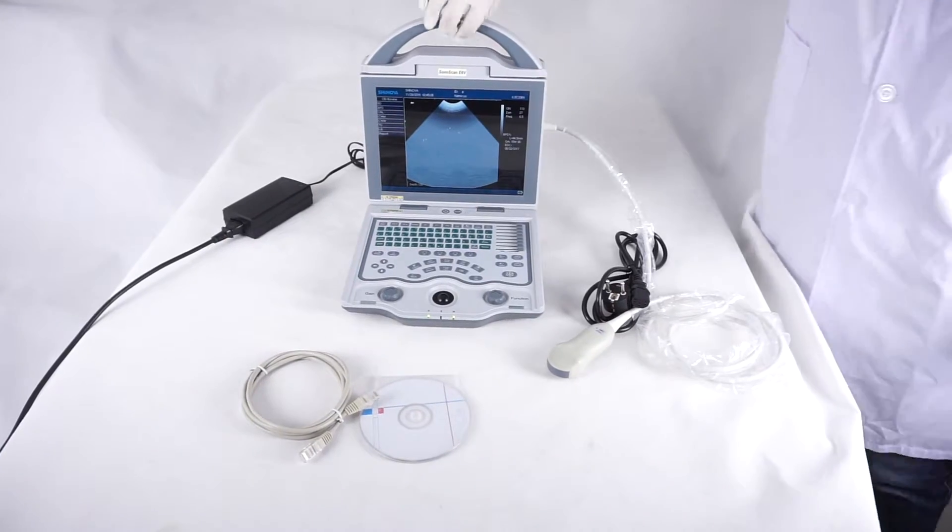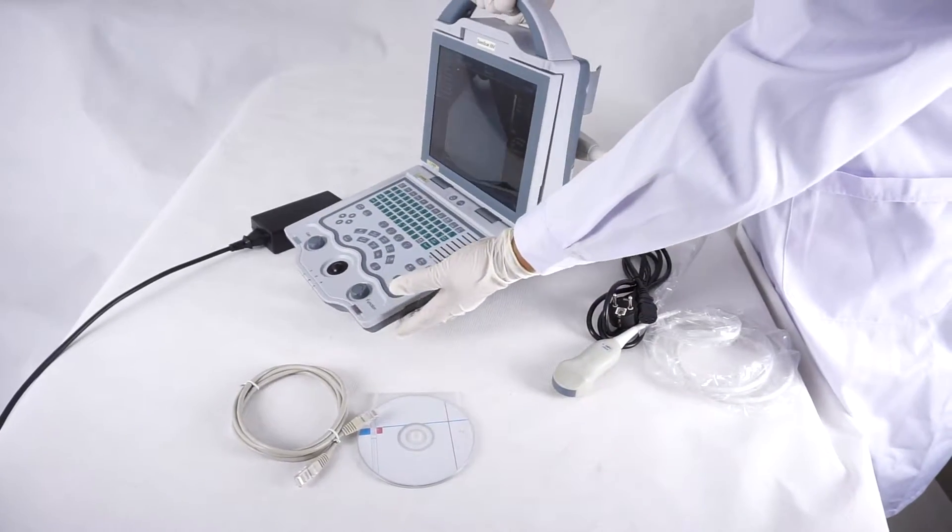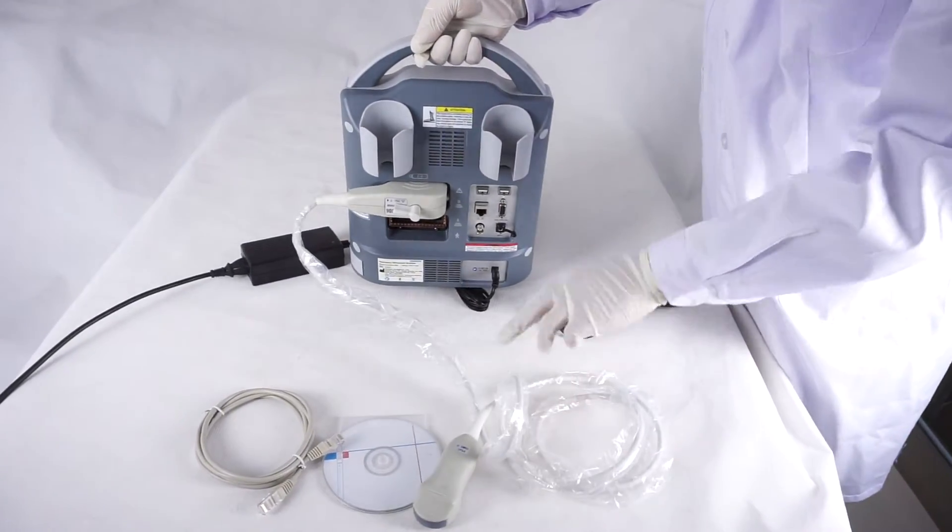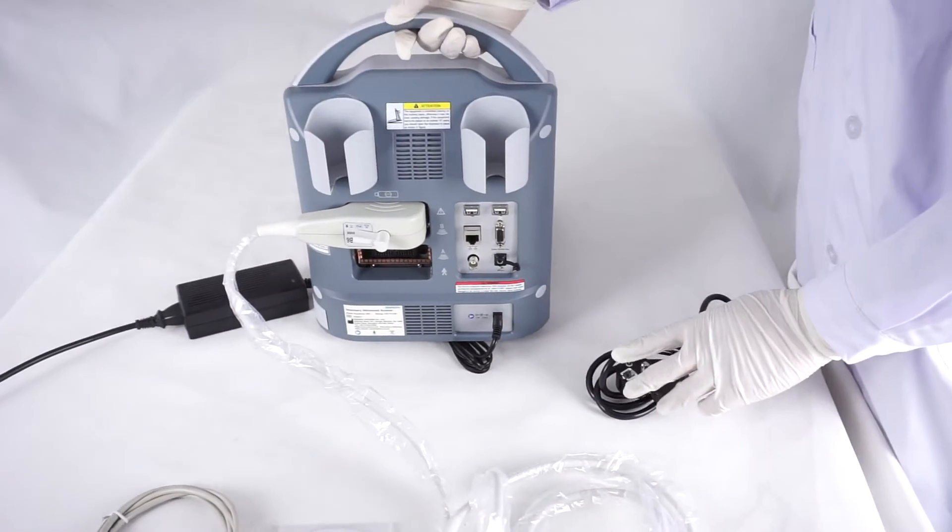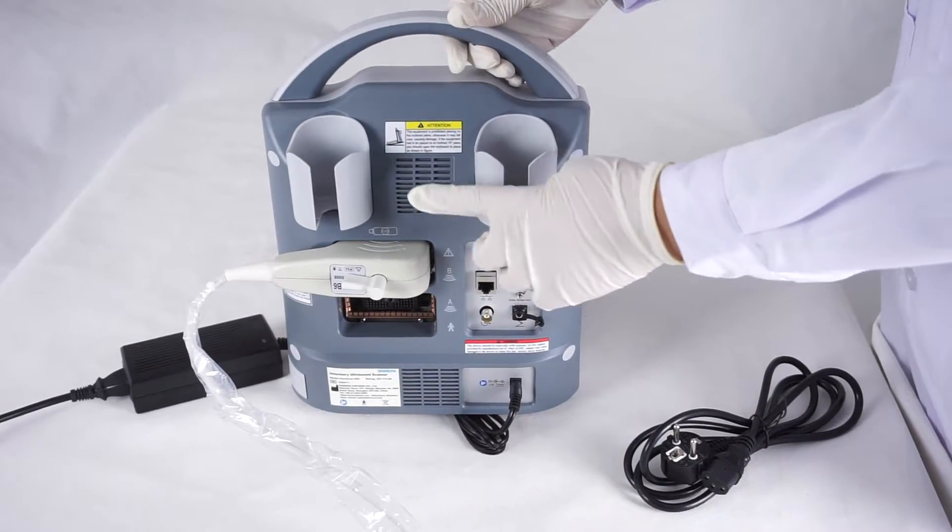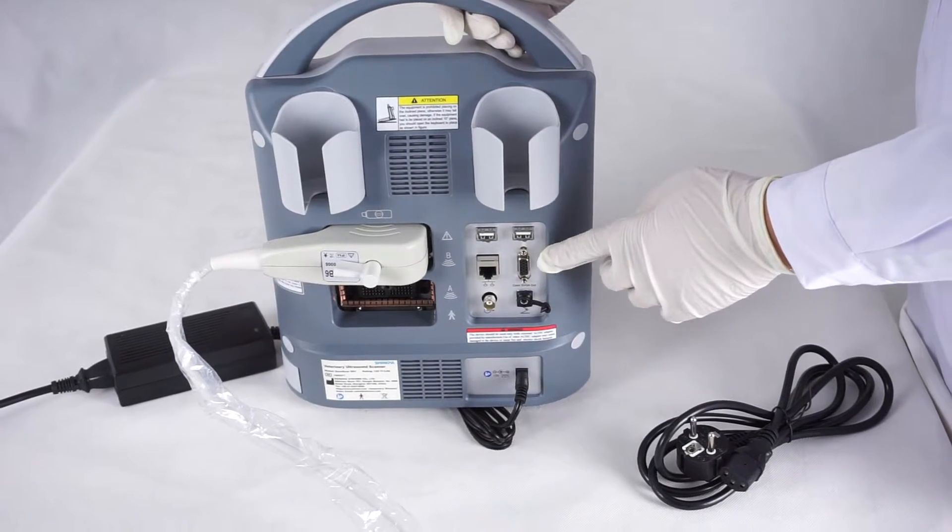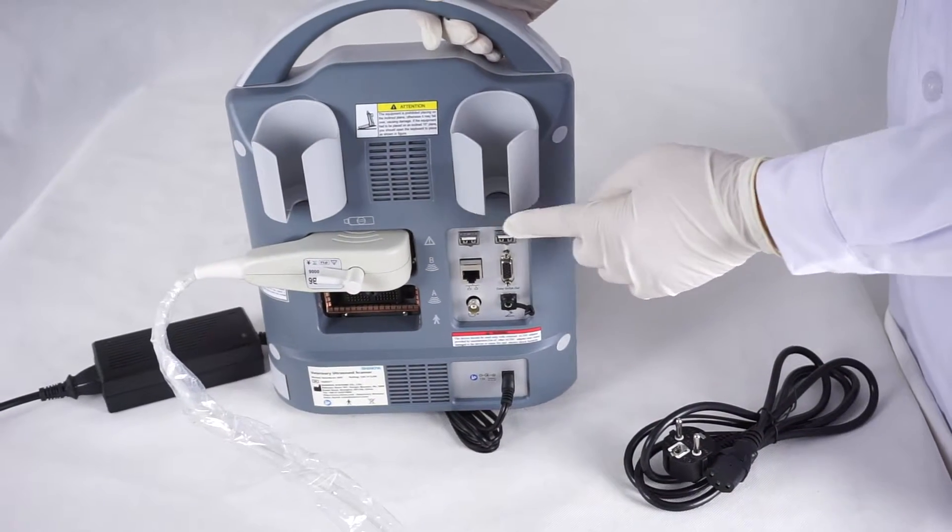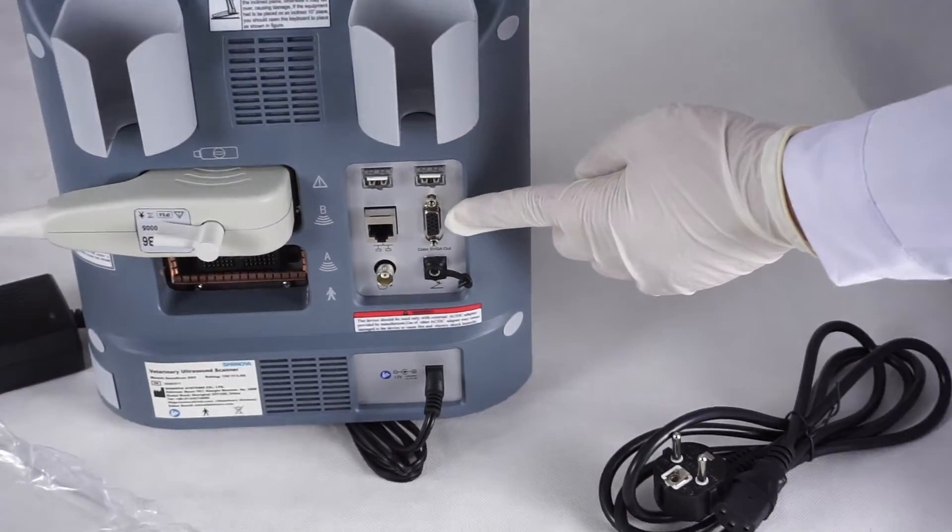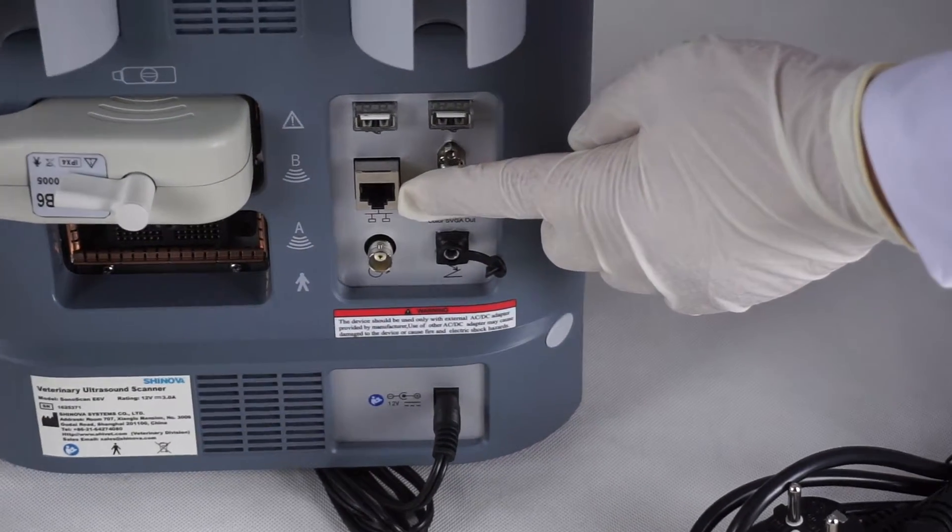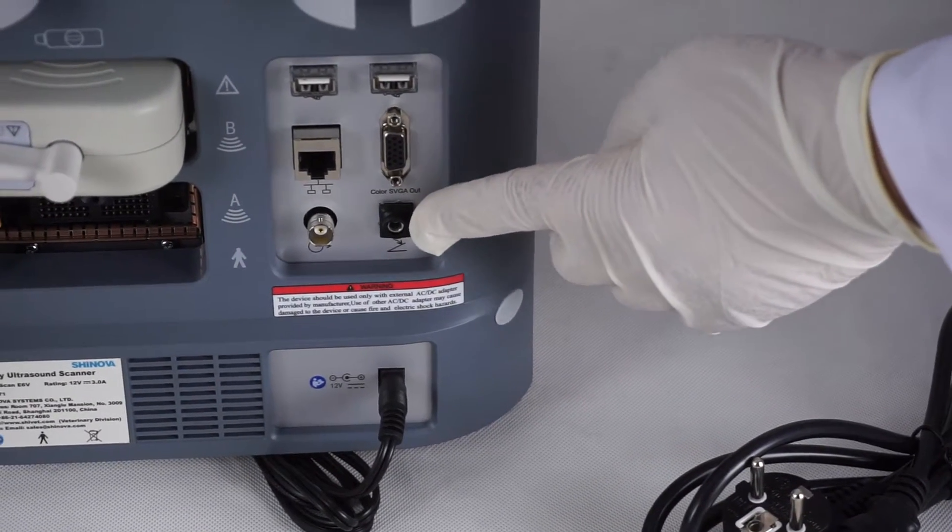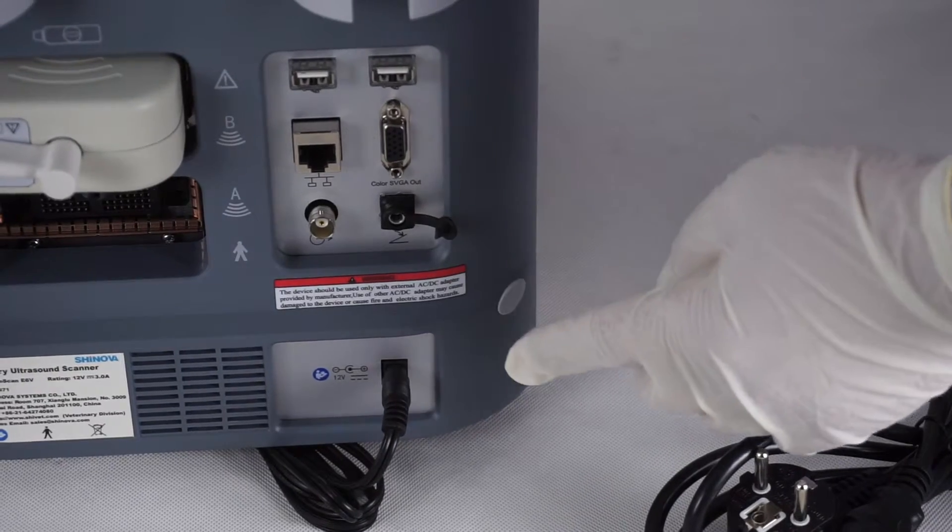Okay, let's look at the back side. Two probe connectors is standard. This is a probe connector. Two USB ports, VGA port, network port, video port. And this is a button for a foot switch, but it's optional.